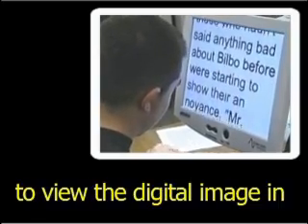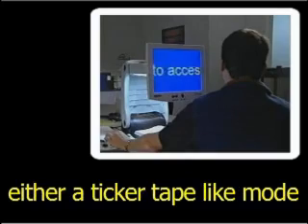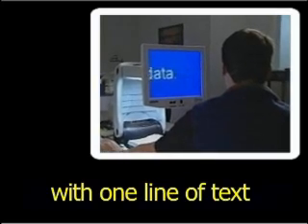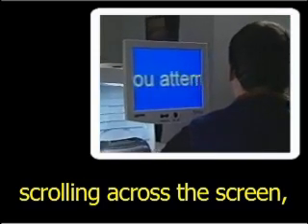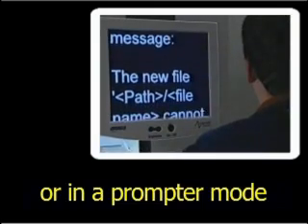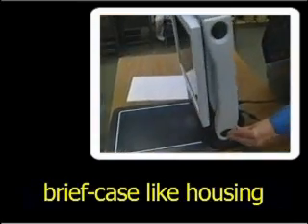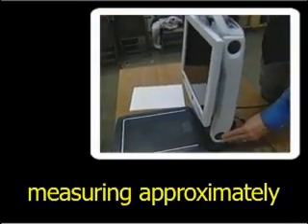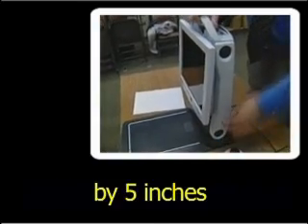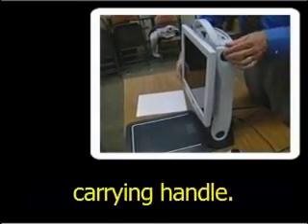The user can choose to view the digital image in either a ticker tape-like mode with one line of text scrolling across the screen or in a prompter mode where lines of text scroll up the screen. The unit is housed in a briefcase-like housing measuring approximately 18 inches by 11 inches by 5 inches with an integrated carrying handle.